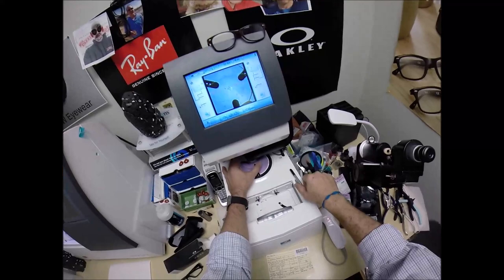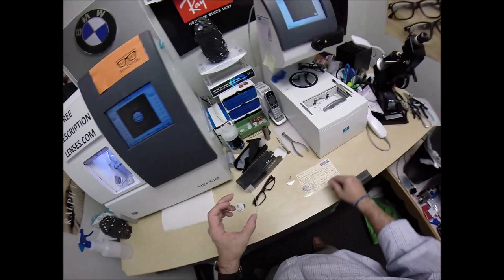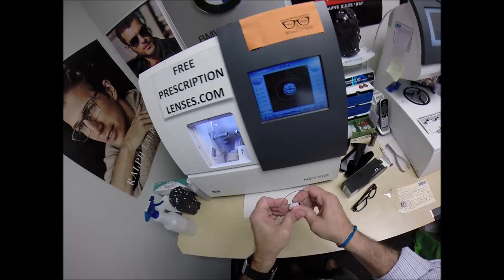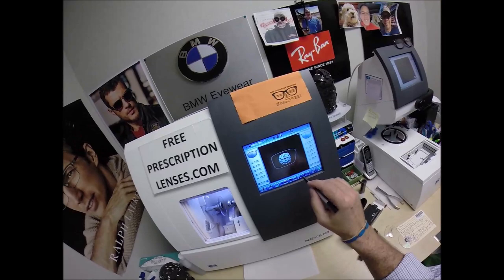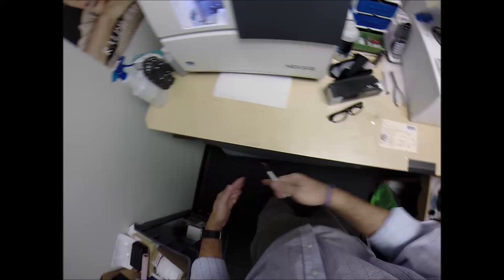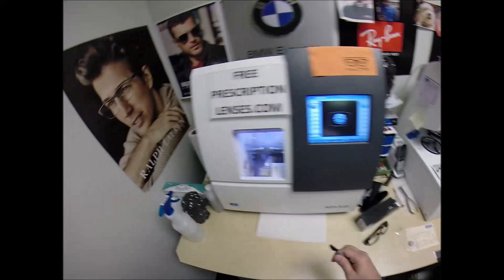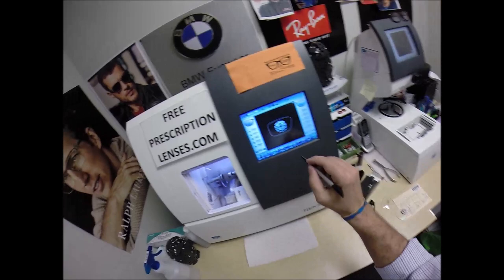Pull the paper away to make the black side sticky, line that up. Same PD for that side and make sure the lens is large enough and it does just fit. That's actually how I got started, is that someone emailed me and said they were told that they couldn't get their prescription in a certain frame, that it wouldn't work. And I said not only can I make it work, let me show you how to do it. And that was my very first video. Because usually where I've worked at before I had patients who liked to stand next to me while I made their glasses.